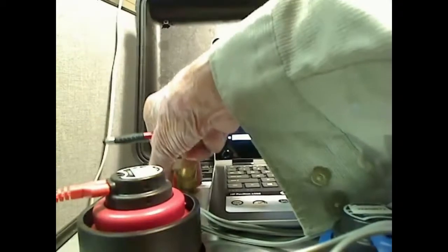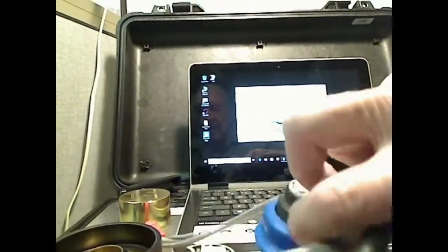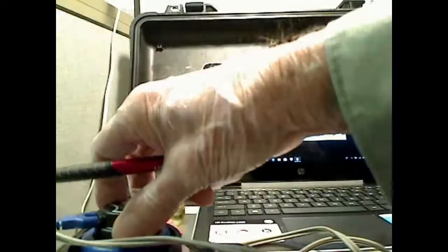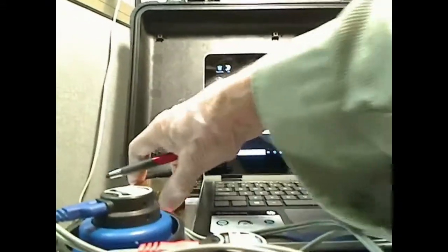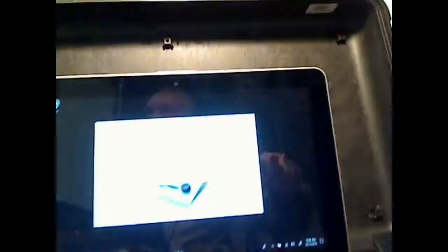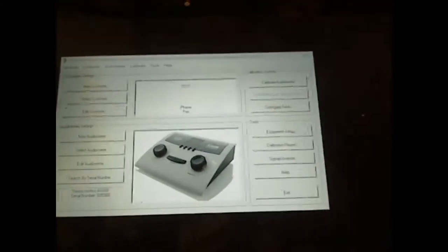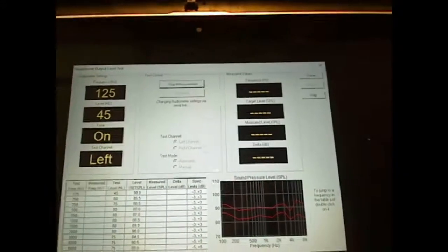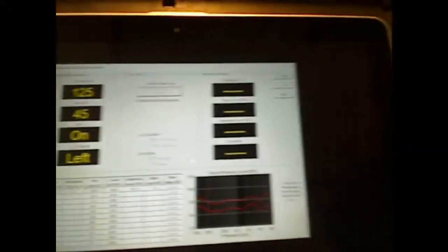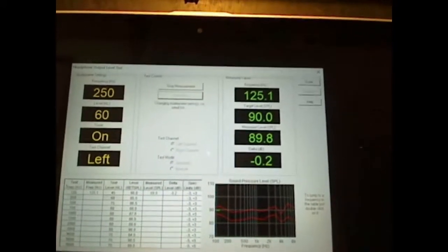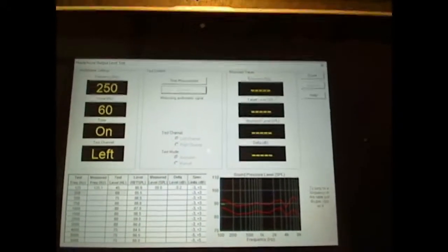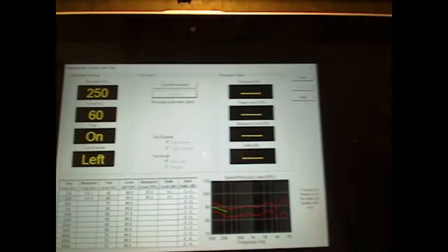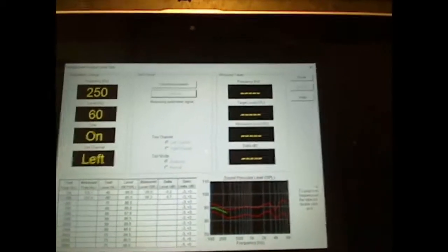I'm going to come back out over here. Take that headphone off. Lay it down here. Put the left one on. Put the weight back on. I'm just going to come back up over here. Push the OK. You see there, the system has already changed over to the left ear and it's doing its thing. And that, very frankly, we're going to do more. But that's how simple it is to do a calibration of an audiometer.